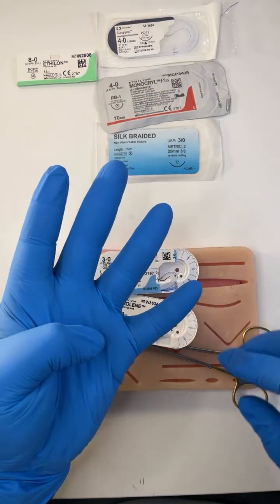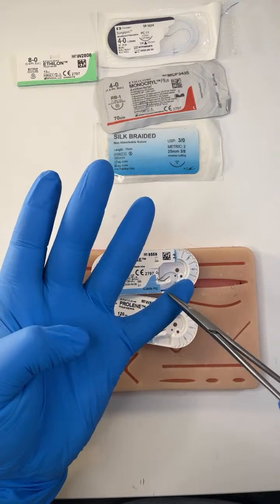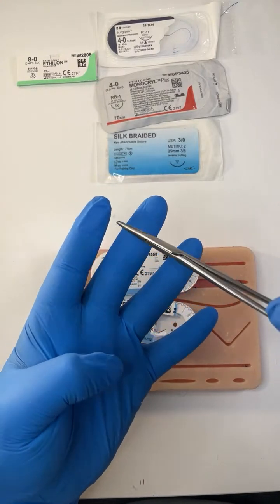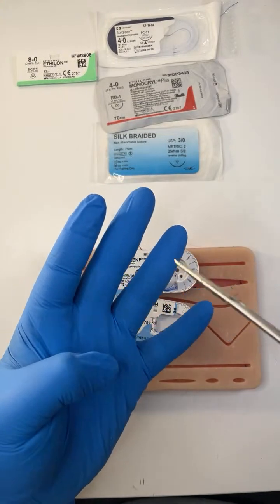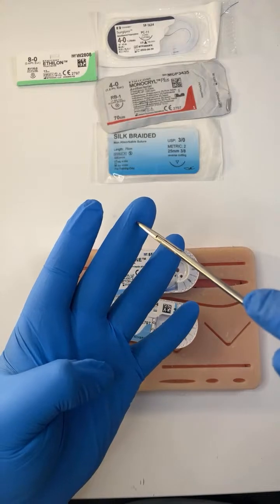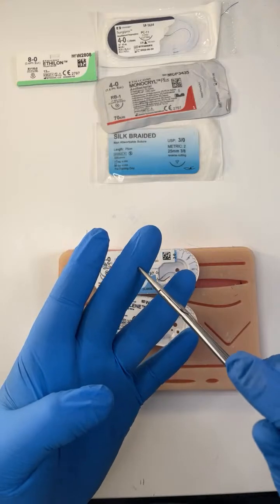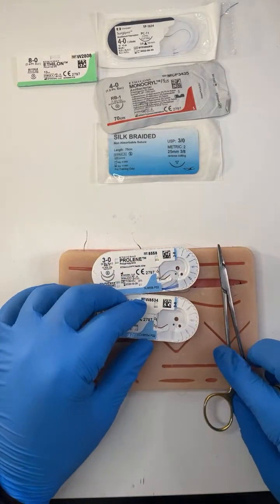First, four things. Sutures can be classified into monofilament, braided, dissolvable, and non-dissolvable. You can be monofilament and dissolvable, monofilament and non-dissolvable, braided and dissolvable, or braided and non-dissolvable. That's the first thing.